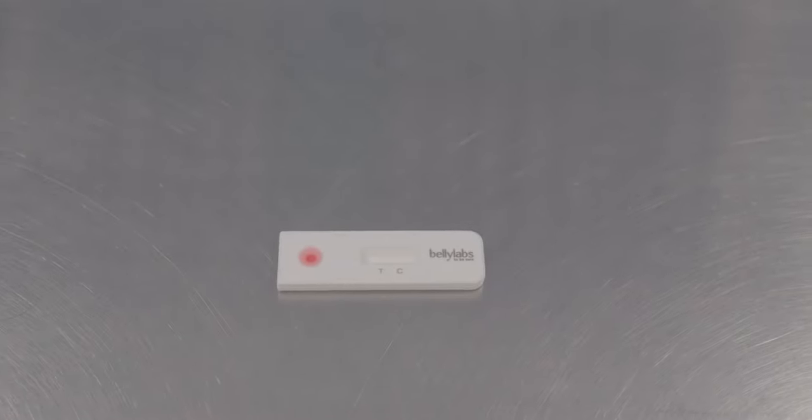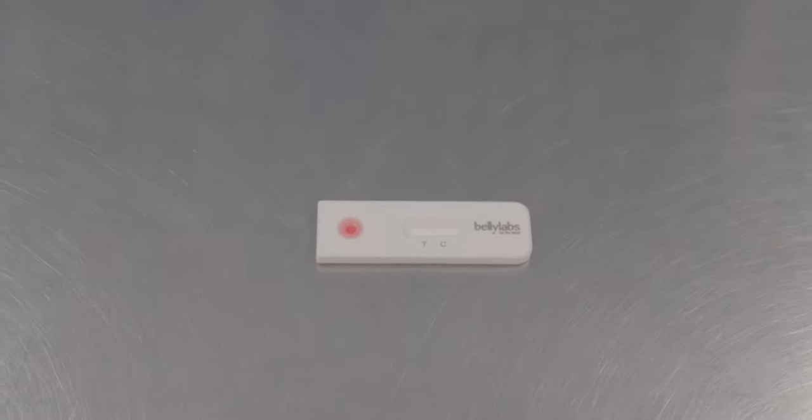Results should be found within 10 to 15 minutes. Two lines, no matter how faint, will signify a positive pregnancy confirmation. One line will indicate not pregnant or retest needed.